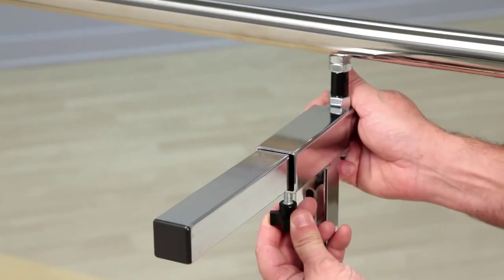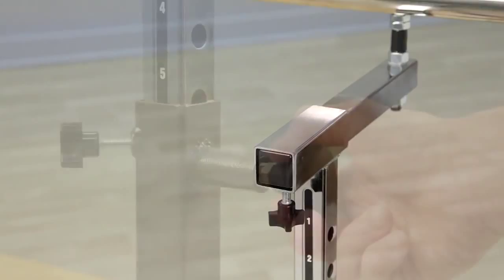Plus Clinton parallel bars are adjustable two ways. Vary the space between the handrails by adjusting the width adjustments at the top of each post.